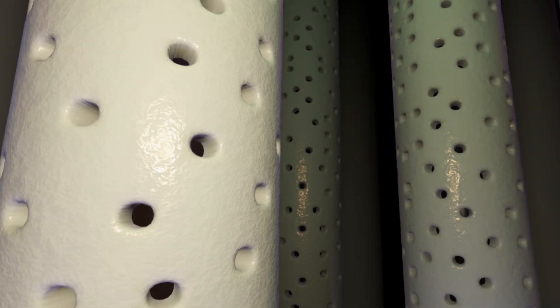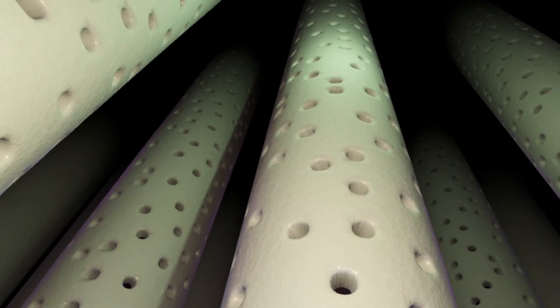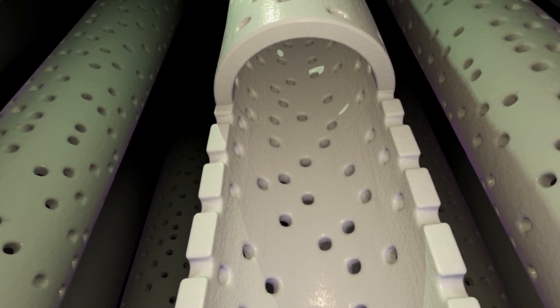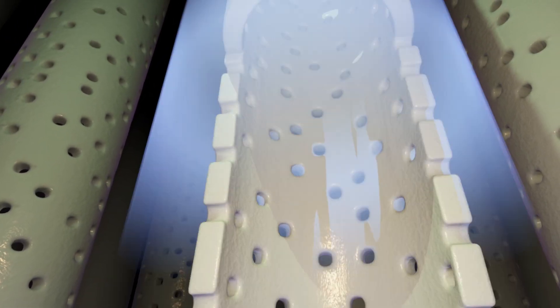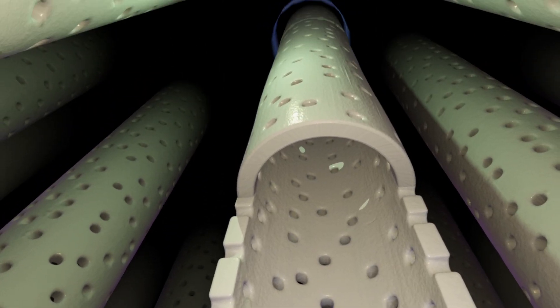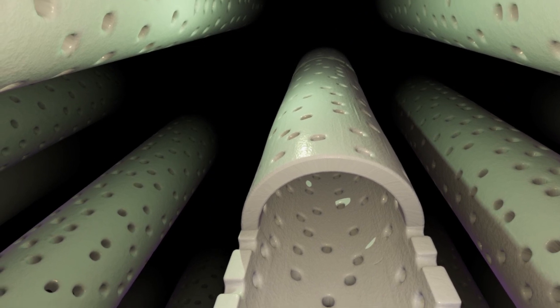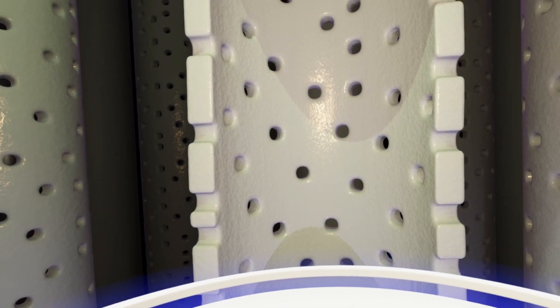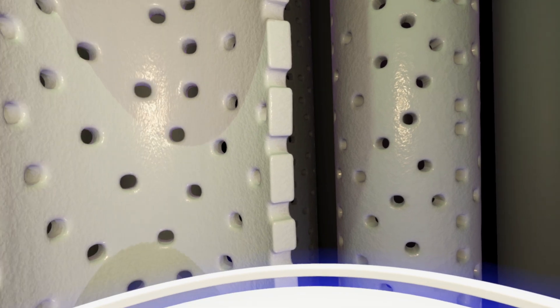Can you hear me? Excellent. You're now inside the dialyzer, safely within the protective capsule. What you see all around you are the dialyzer fibers. The walls are white and the surface looks smooth. The pores are randomly formed along the surface and vary somewhat in size.